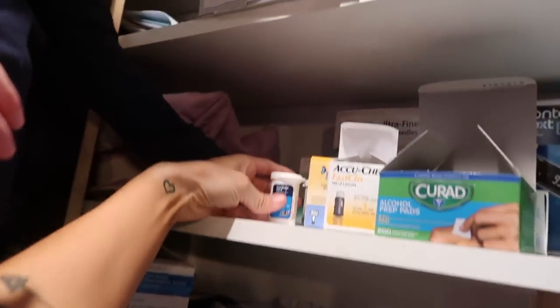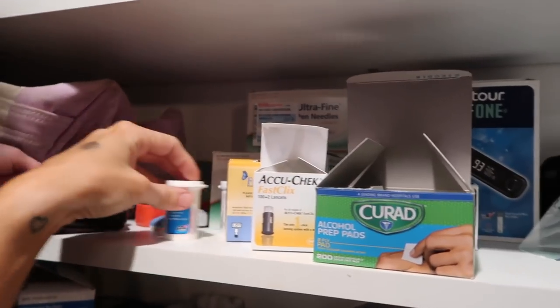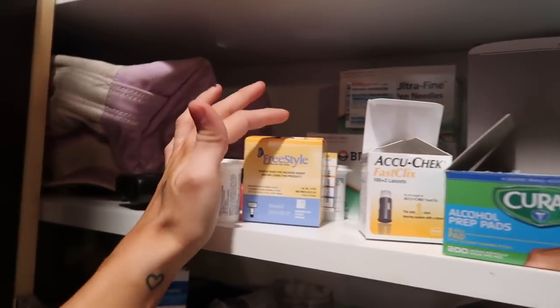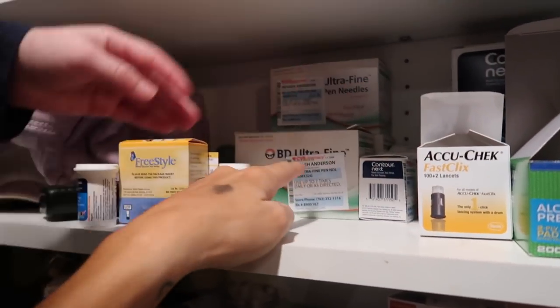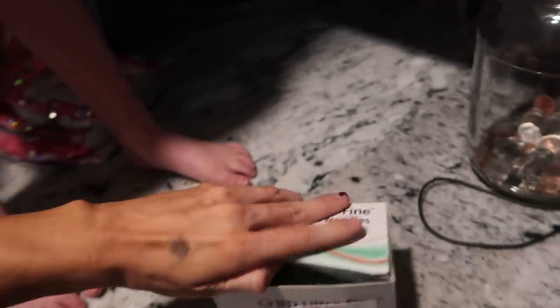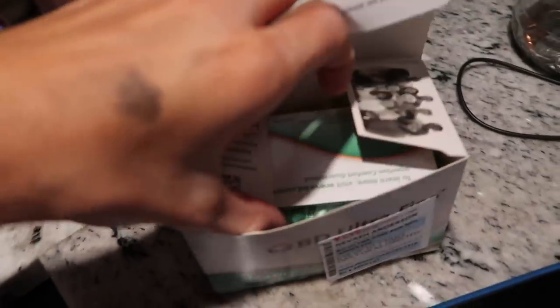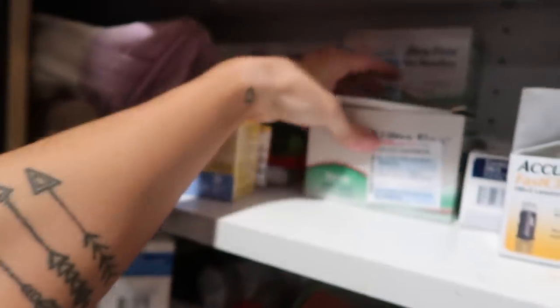We have just strips — a whole bunch of strips. We have these strips that are for her Omnipod. And then over here — remember those? These are all those pen needles. These are all the needles for her shot if she got shots in her arm again. We had a whole bunch of those from when she was first diagnosed.